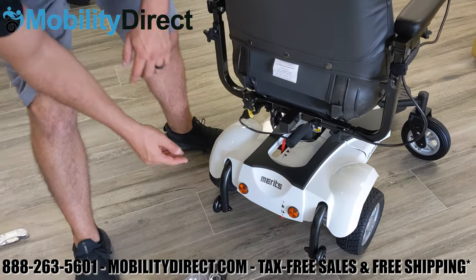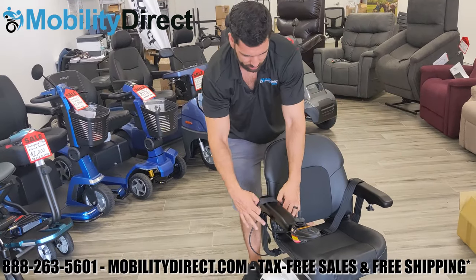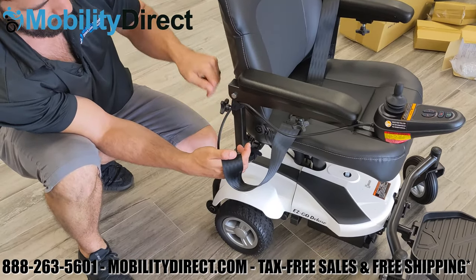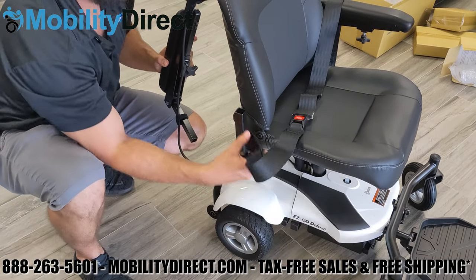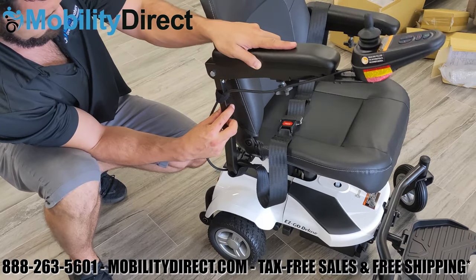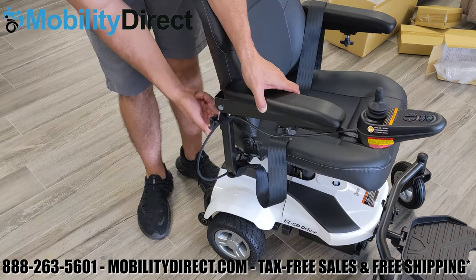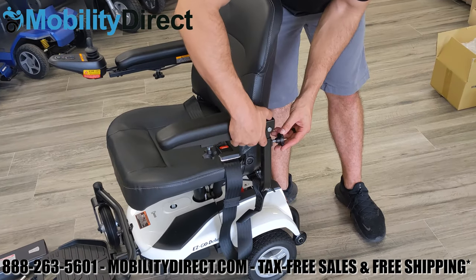We're going to show you how to install the seatbelt. All you have to do is remove the armrest pads and put the loops on each end of the seatbelt strap around the 90-degree armrest rail. Then reattach the armrest pad by tightening the tension adjustment knob for each of the brackets. Repeat on the other side and you'll have the seatbelt installed in no time.